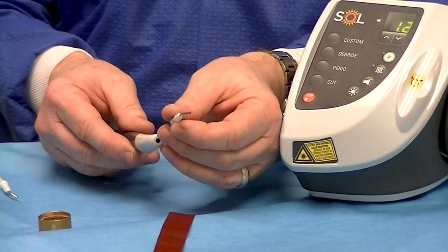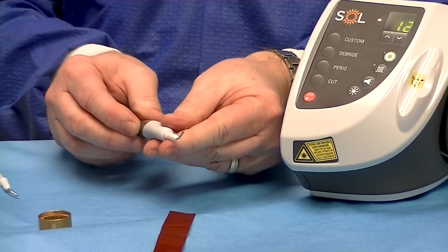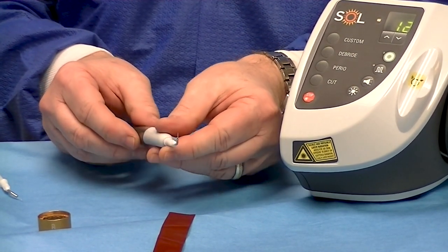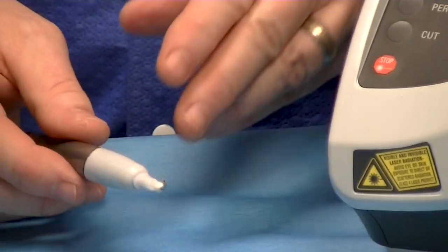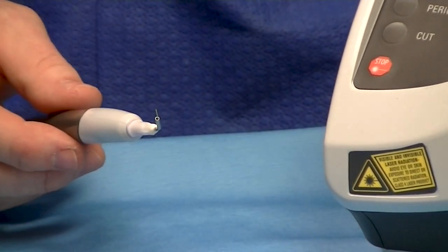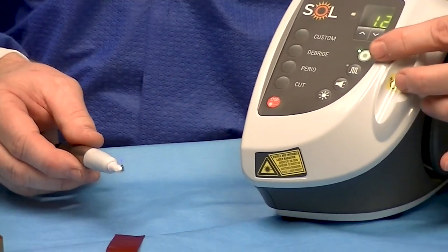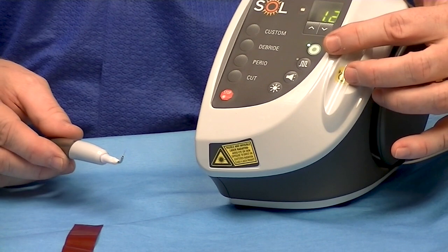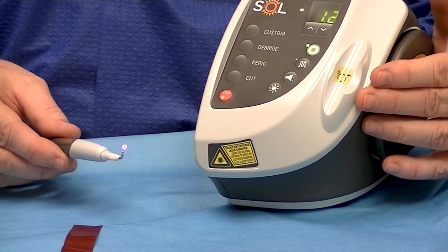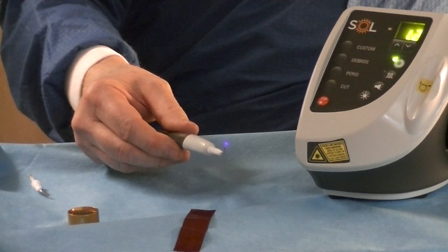There are also two different types of tips. One is a skinnier tip and it just simply slides in. If we hit the foot control, you can see nothing happens. We want to activate it and you can see the green light coming on. If you run it, you'll see a light — a blue light as it's being activated.